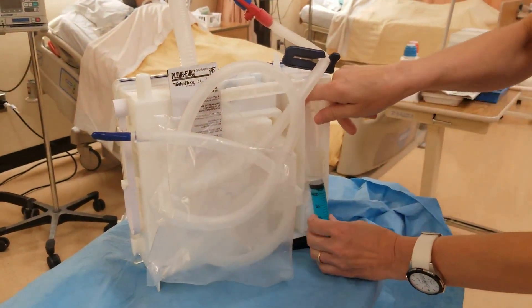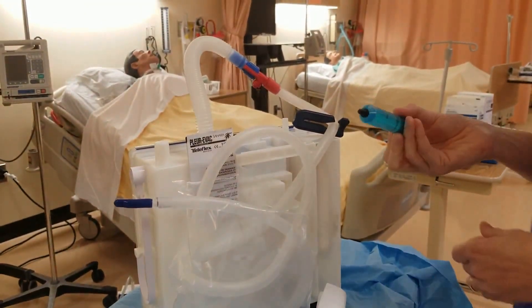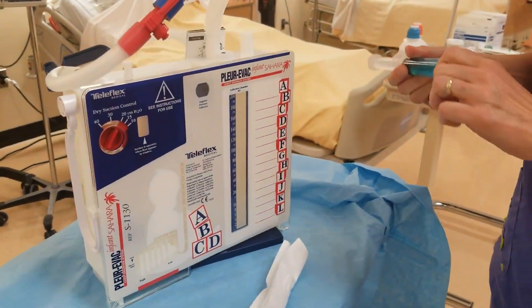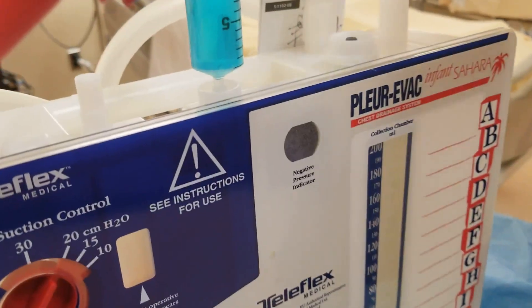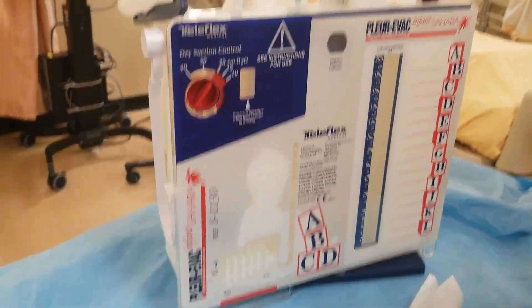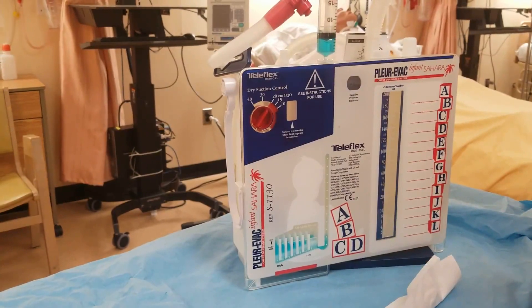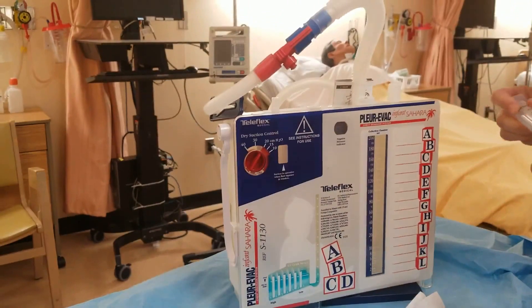Here is my syringe filled with sterile water, and I need to basically inject that. I need to put it into the right port — this little port right here. As I pour the water in, it's exactly 20 mLs. It will fill up the air chamber. As you can see that filling up, that is very important. I've often seen that get missed.